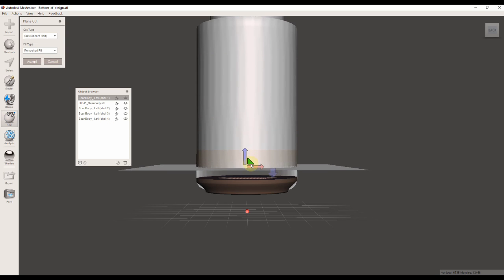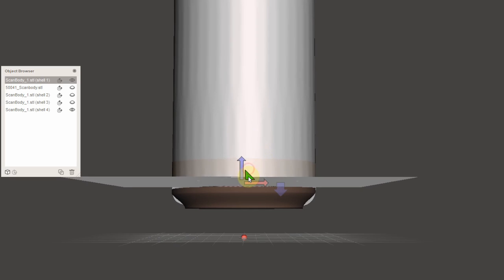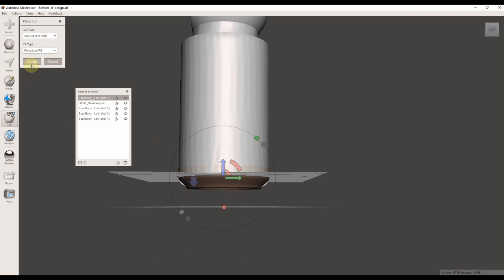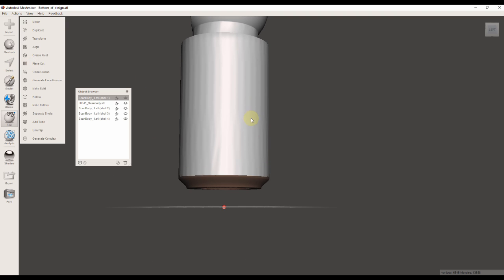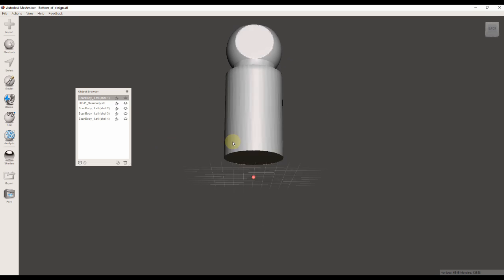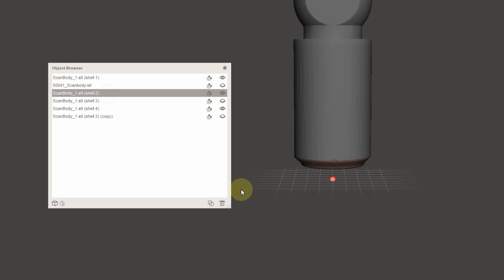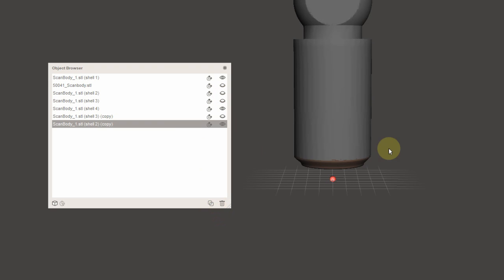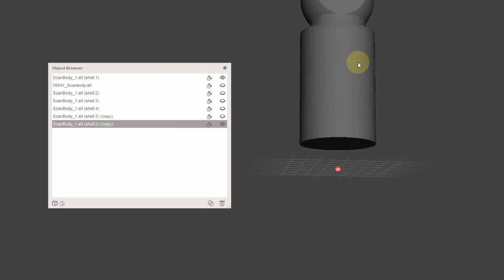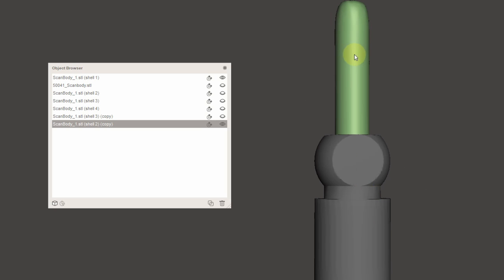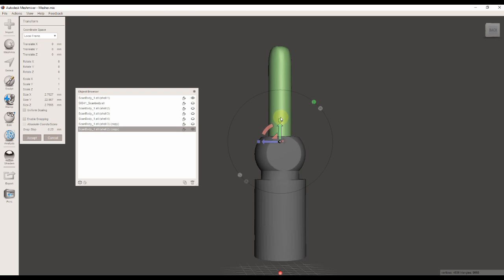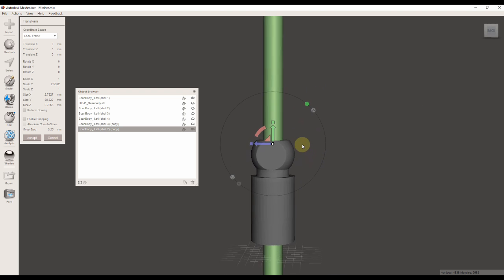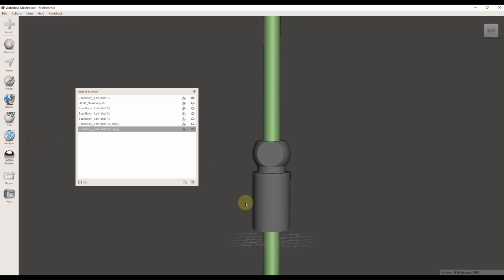At the bottom, I'm going to line it up exactly with the bottom of the design where the intersection is, click OK so it's flush there. Then I'm going to select my screw channel STL and make a quick copy of the screw channel because I'm going to need it later on in another step.